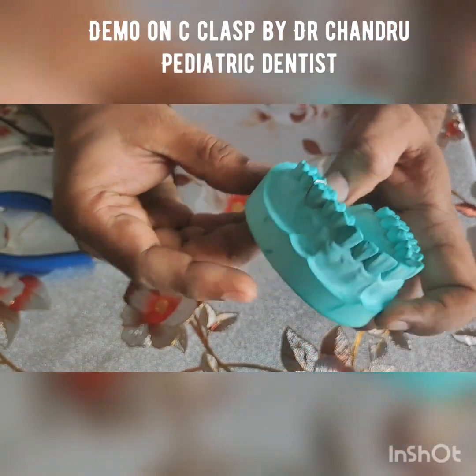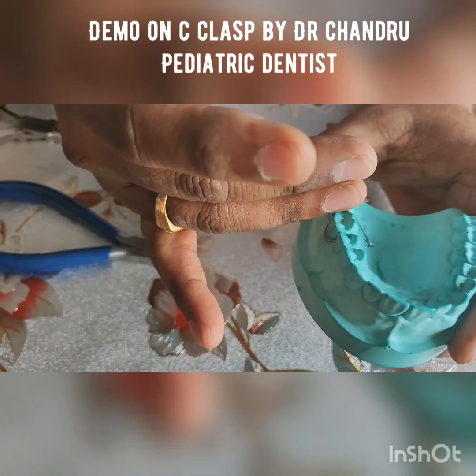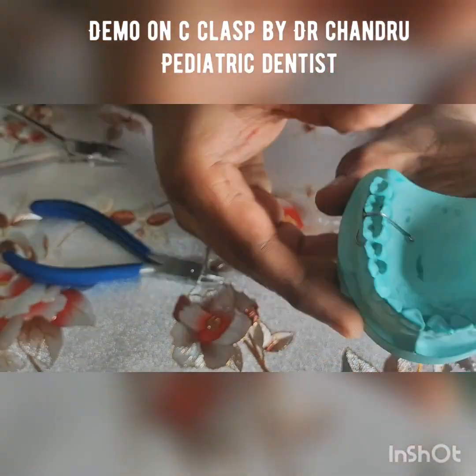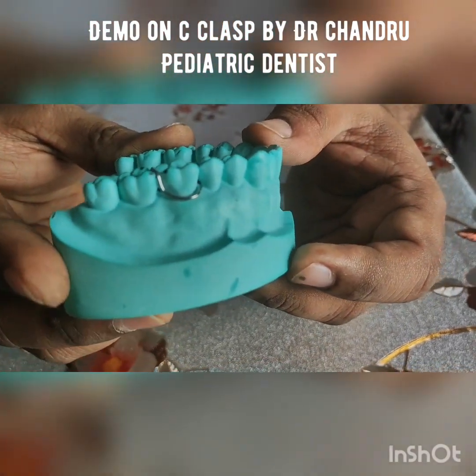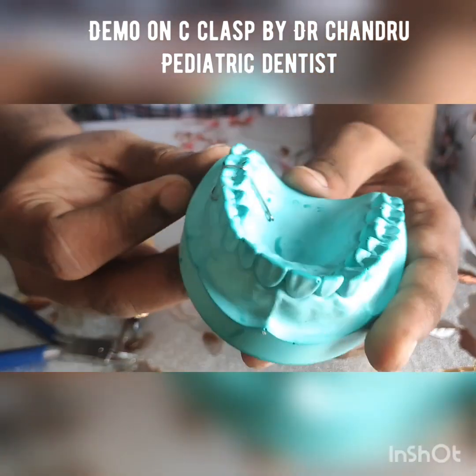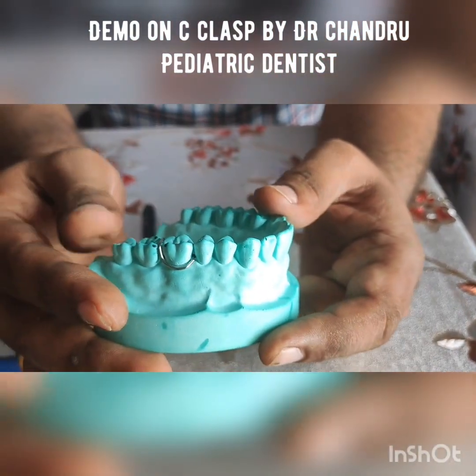So you can see it from all the views: the buccal view, the occlusal view and the palatal view. So this is the construction of a C clasp which has been done. Hope you have understood the way of construction. If any doubt is there, please you can ask us.